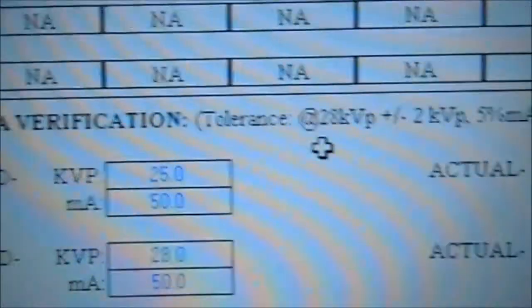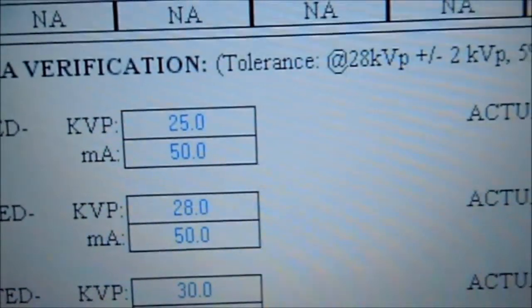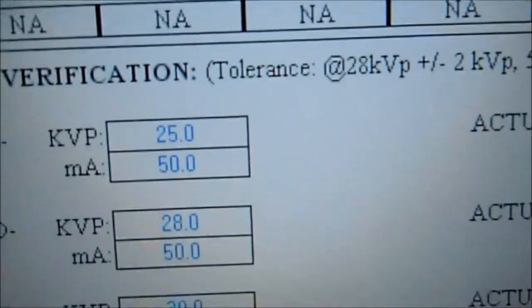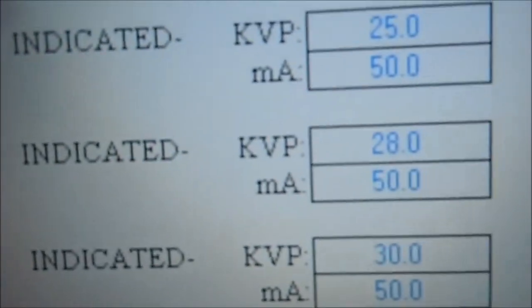So we will document that here. Our indicated versus our actual, which is 26.45.